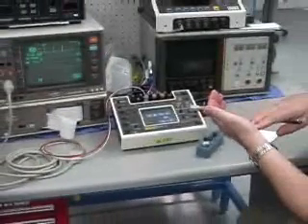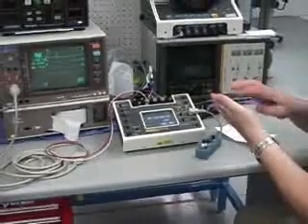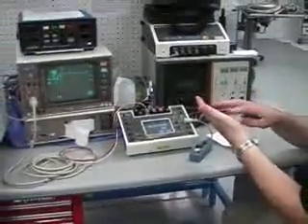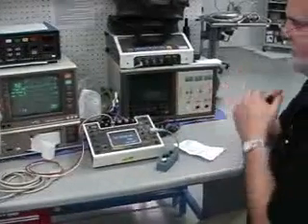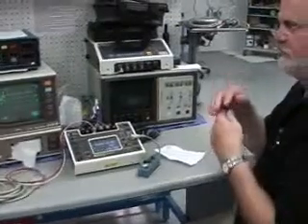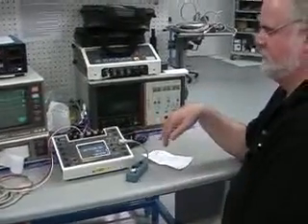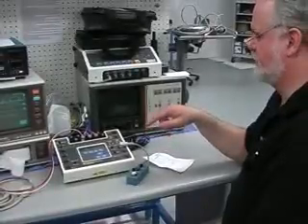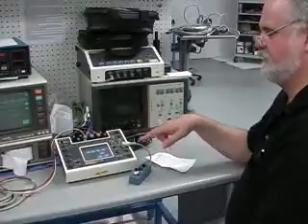So the basic functionality, changing the heart rate and going to different arrhythmias, you can do all that with a direct keypad. But again, that's just another control tool. So you can do it manually, or I was thinking that we can come up with some other sequences. You can do that via the med tester.